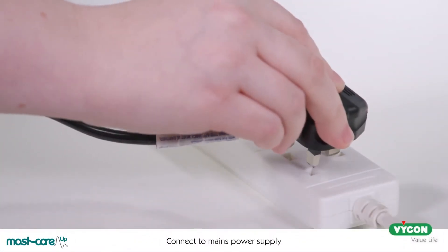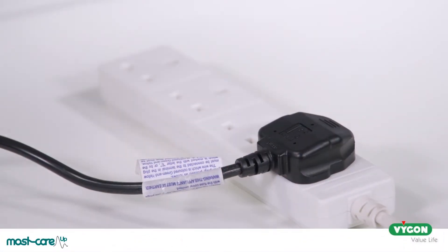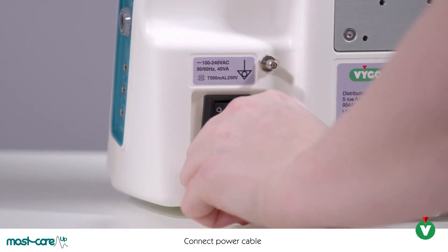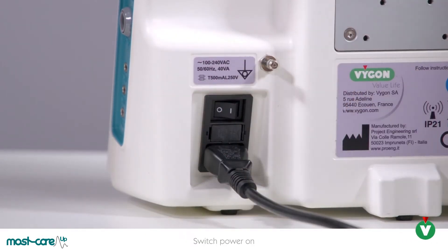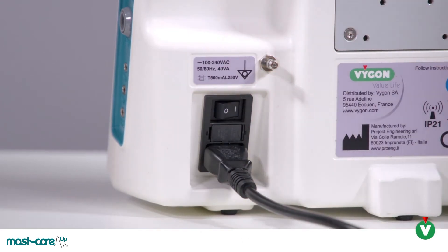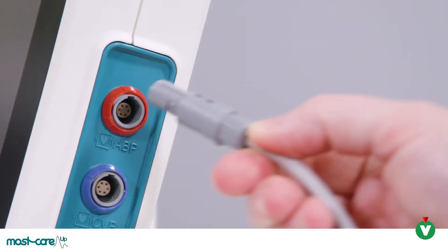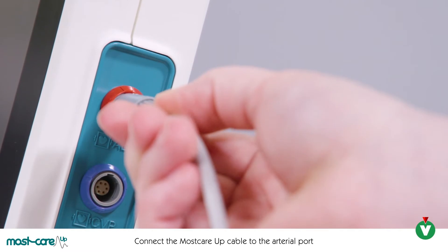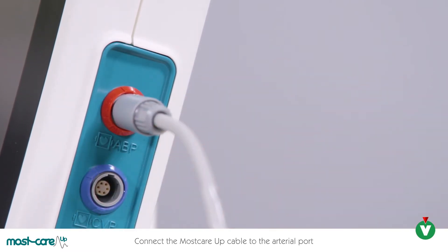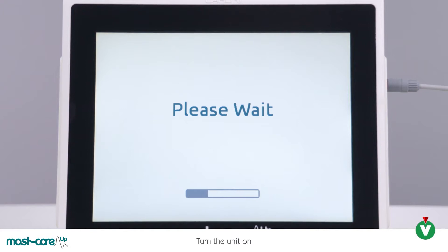Plug the power lead into the mains power supply. Connect the other end of the power lead into the back of the MostCare monitor. Turn the MostCare power supply switch into the on position. Connect the MostCare arterial cable into the red port. Push the on button to turn the monitor on.